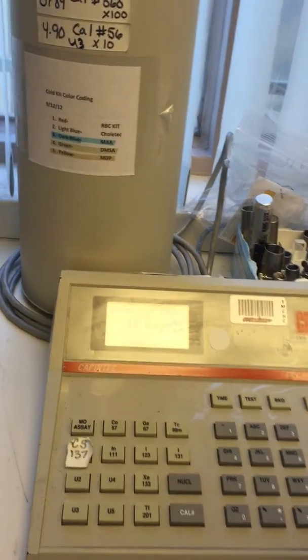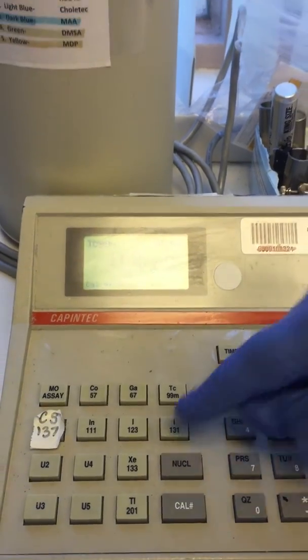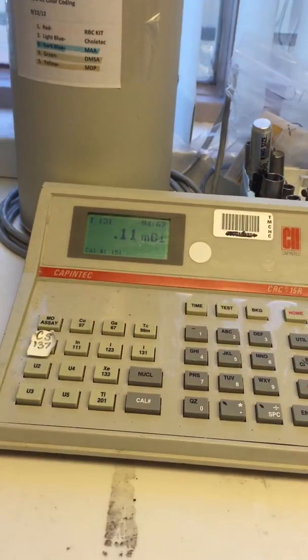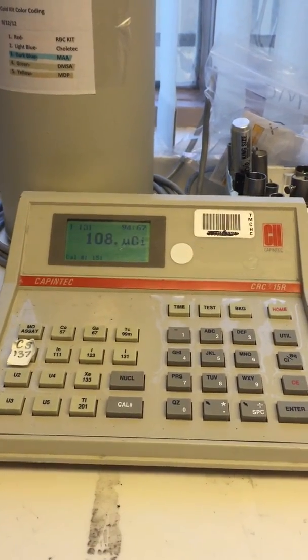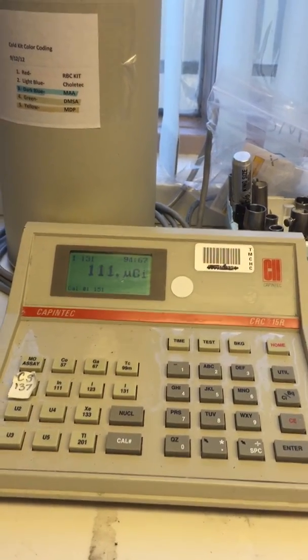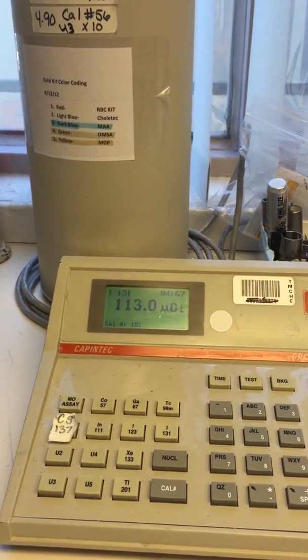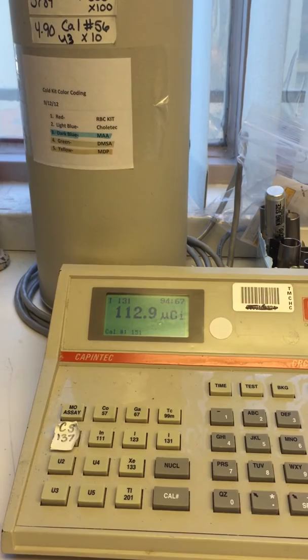And then we're going to choose another channel, iodine-131. Just wait for it. Let's go down to the lowest setting that it can go. Okay, 113.